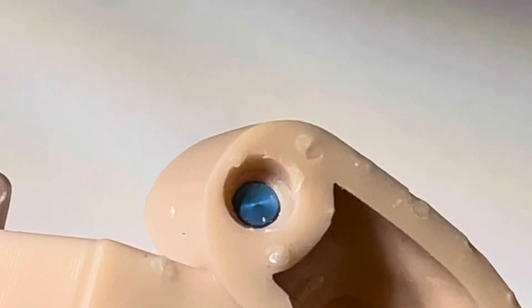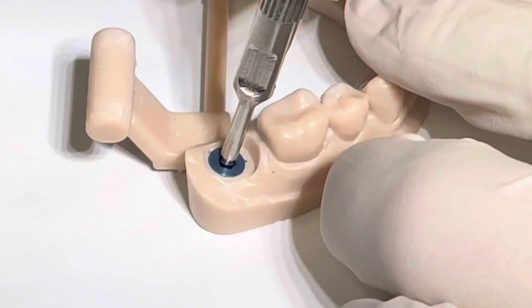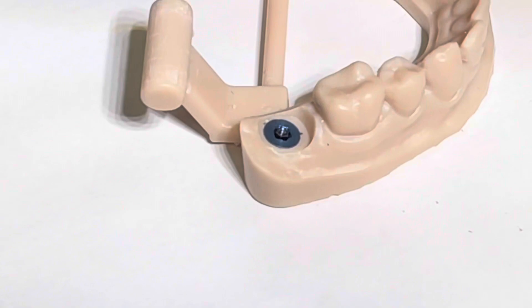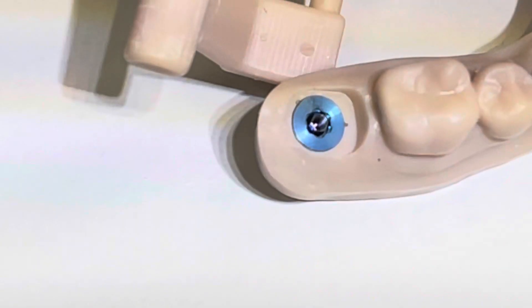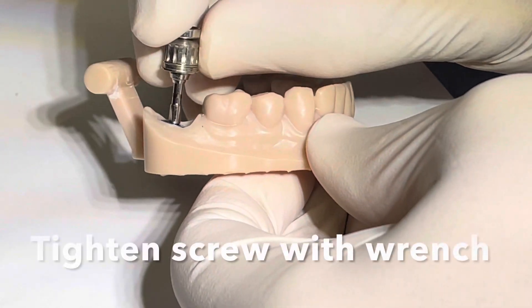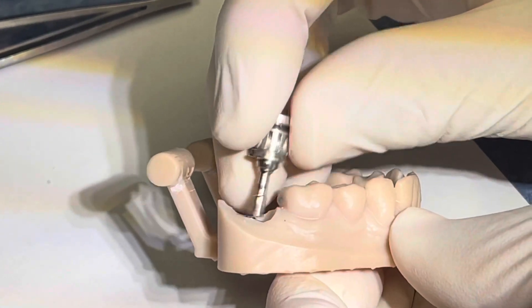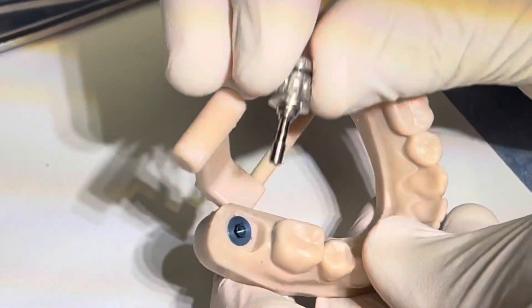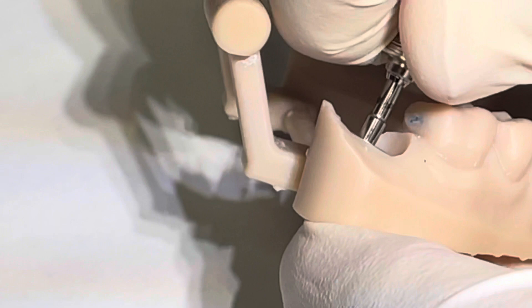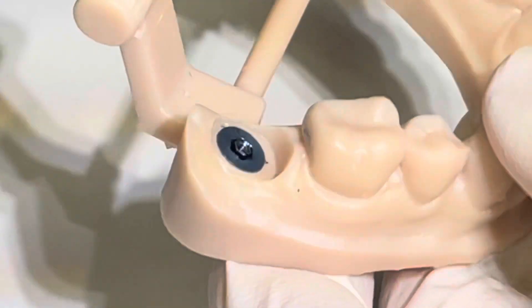You take off the insertion tool and check to make sure the screw is in place. A couple of things to confirm: ask whoever's doing the impression what height of abutment they used for the intraoral scan, because there are different heights. Also ask what size platform is being used, because this represents the on1 abutment rather than the implant platform depth.